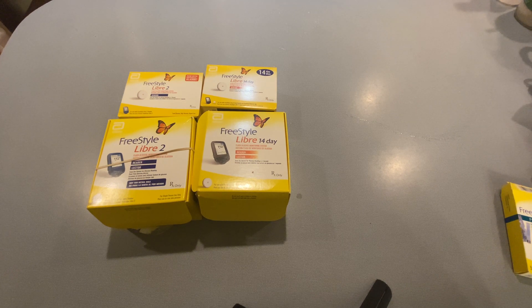Hello, ladies and gentlemen, hope you are doing well today. We have a very special unboxing for you. Today we are going to be doing an unboxing of the Freestyle Libre system. This is a continuous glucose monitoring system that is much like the Dexcom. What I hope to do today is to educate you if you are considering one of these units.